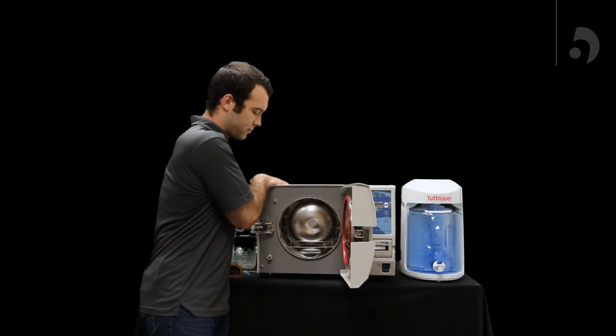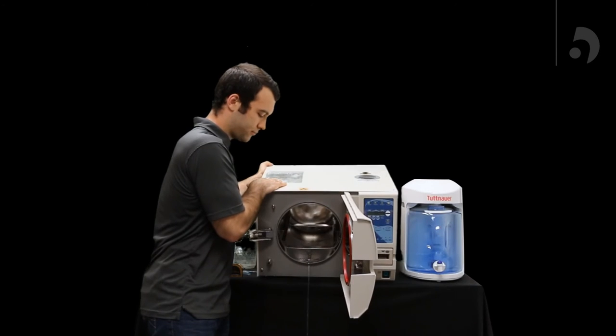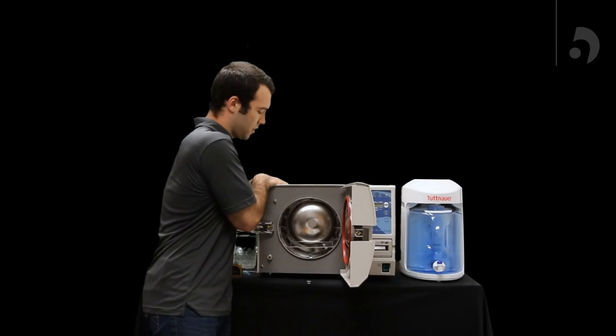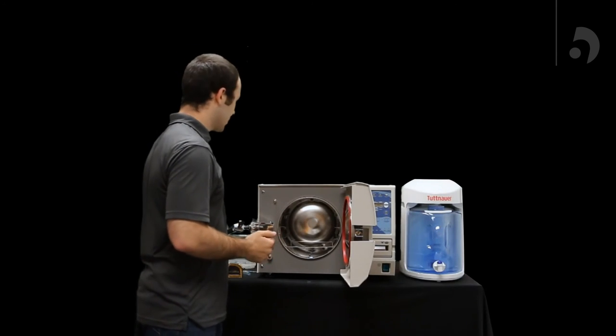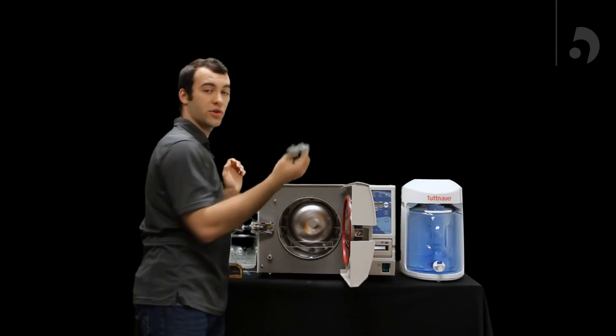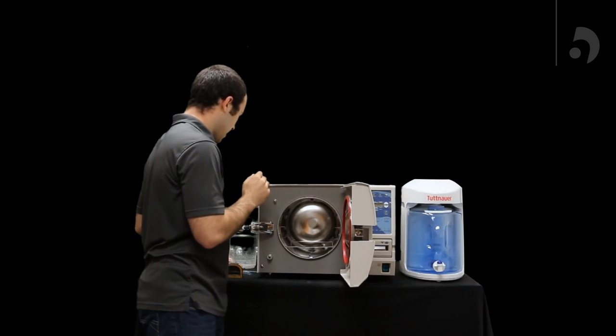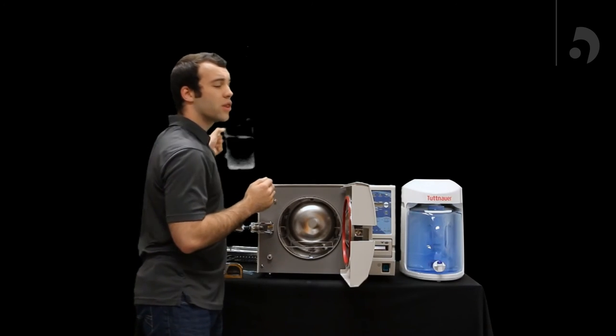So from there, you can just dump it on out. And then we can get to filling the reservoir now that we know the water will fit. So you're going to pull off your reservoir cap and fill your reservoir with about three liters of water.